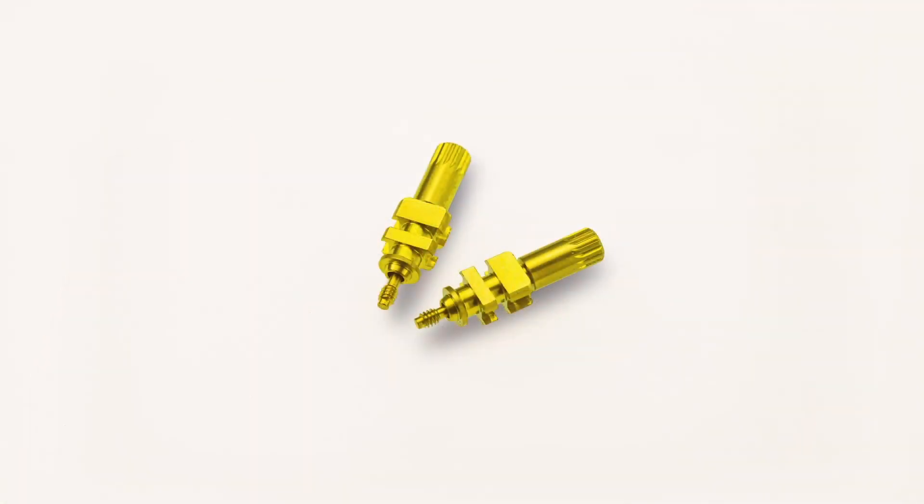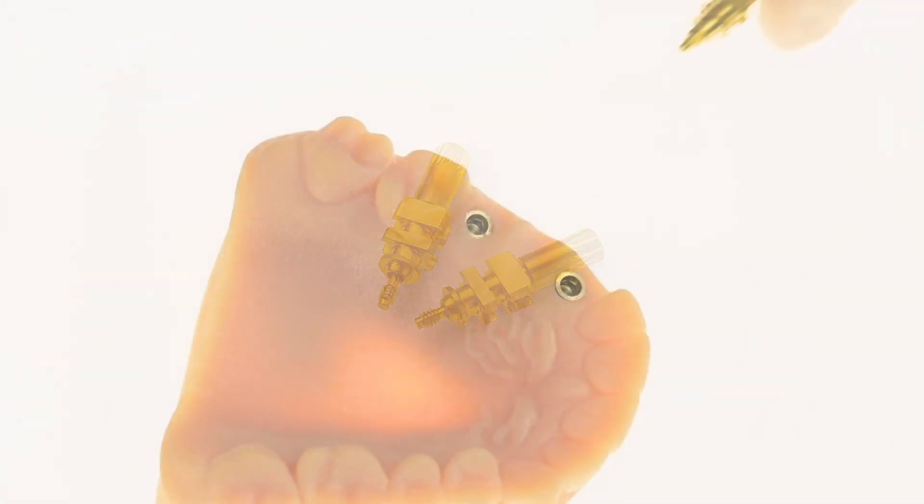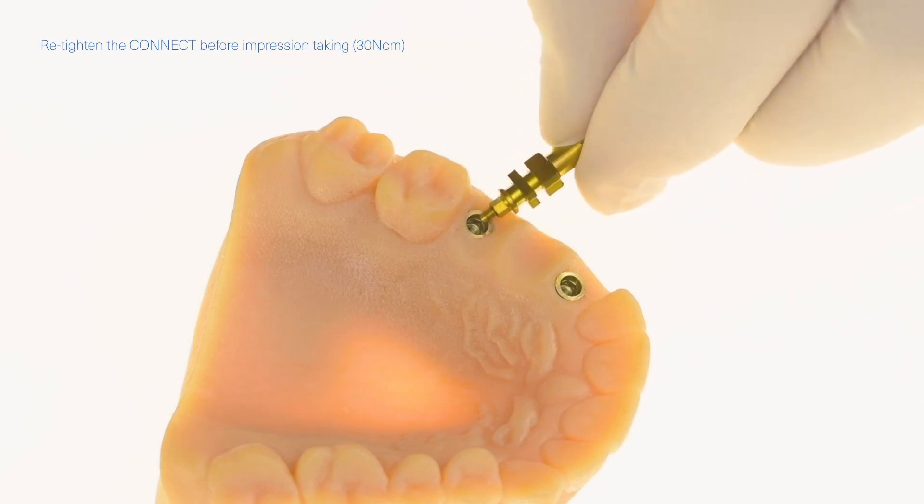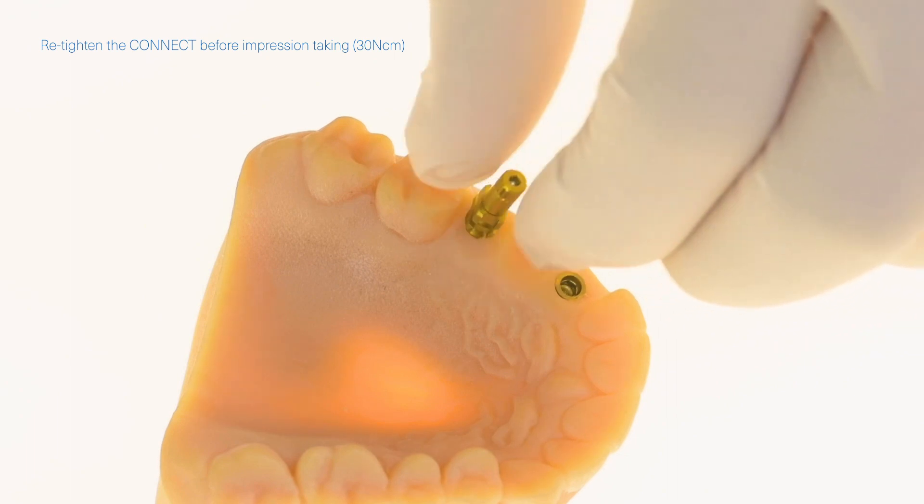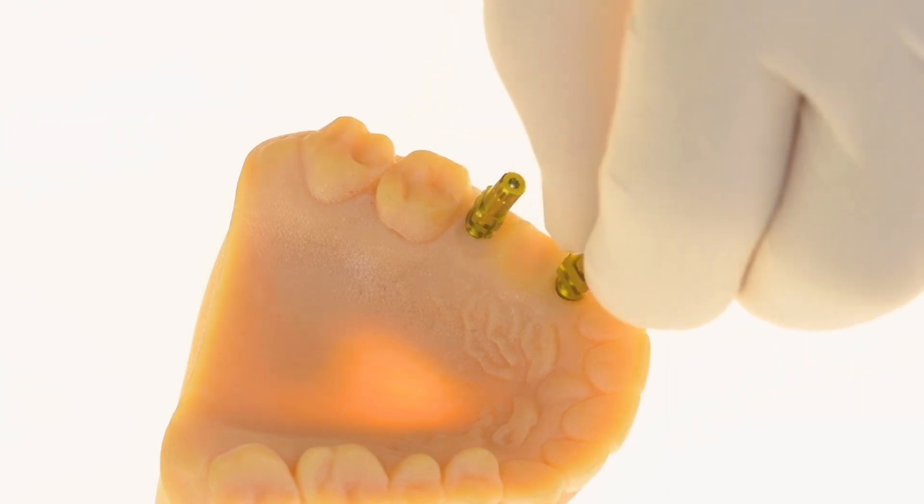When ready for final restoration, the Connect may be used in traditional analog procedures or by scanning the scan post which is connected to the Connect abutment or analog. You may choose to use either open or closed tray impression transfer copings with the Connect abutment system.